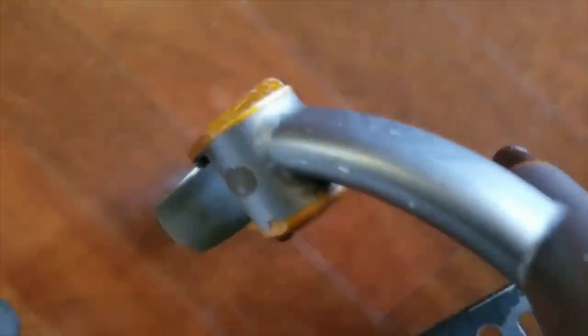The caster that I blew the bearing — you can see how it's pressed up against the side of the fork. So when I'm wheeling, that friction on the right side will prevent me from having a nice smooth wheel, and it'll also want to force me to turn when I don't want to turn. There's a lot of friction there. I can definitely hear it. Let's get that changed and put some fresh wheels on there for a smooth ride.